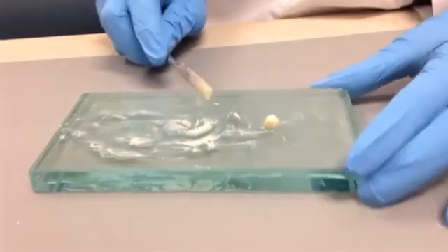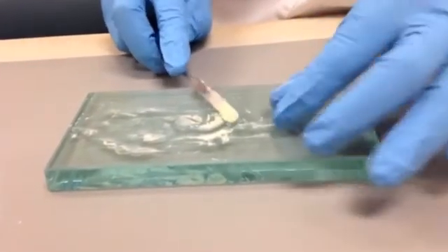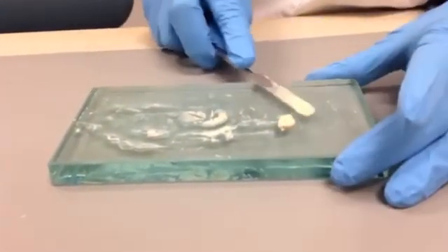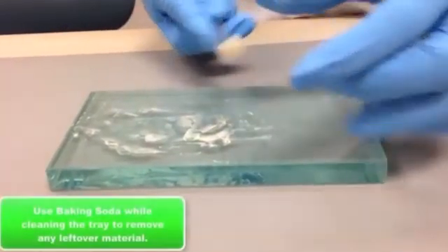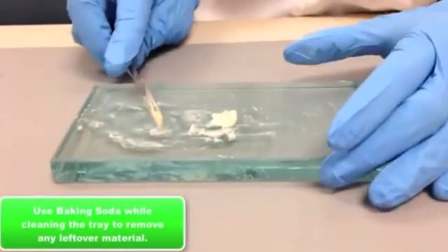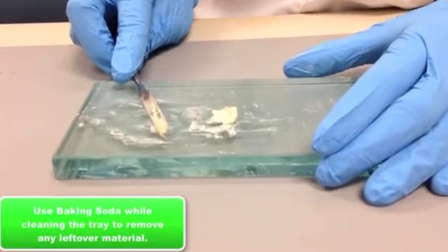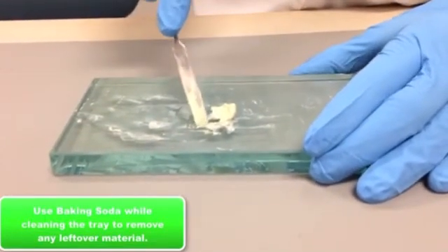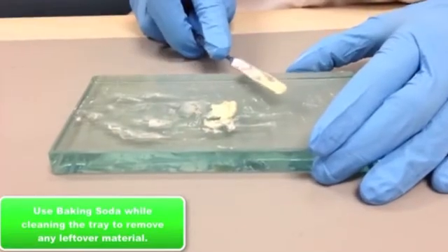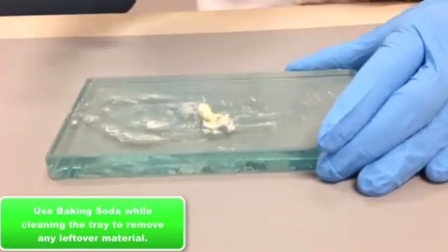Now this is a very sticky and hard to remove powder once the powder and liquid are incorporated. So we ask that you use baking soda when you're cleaning your tray and the material will come right off. If you don't use baking soda, it's very, very difficult to remove the tenacious consistency.